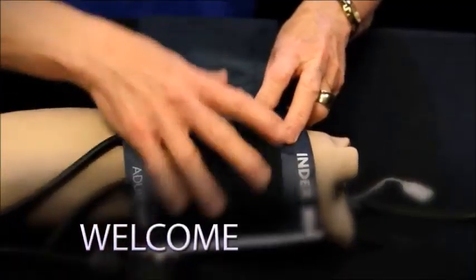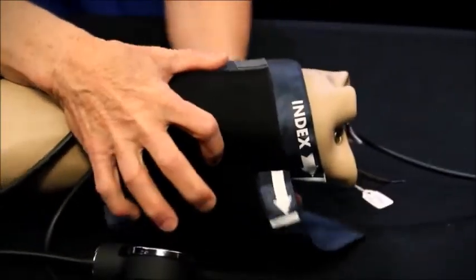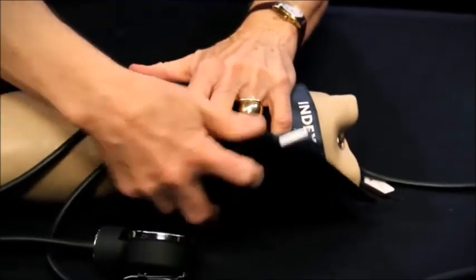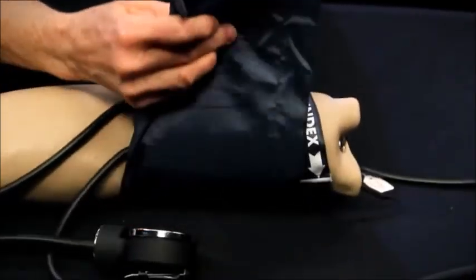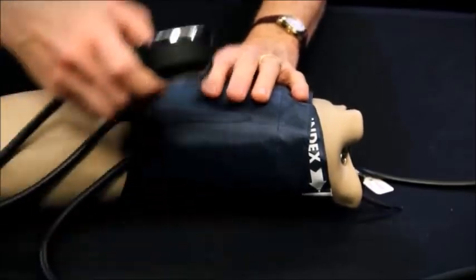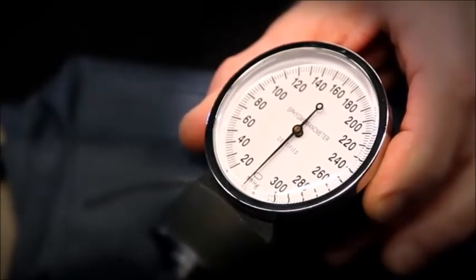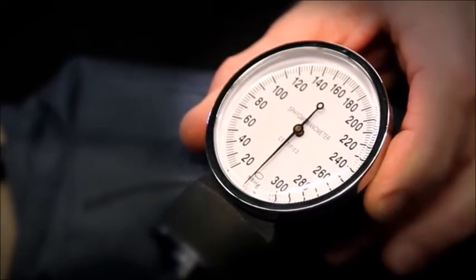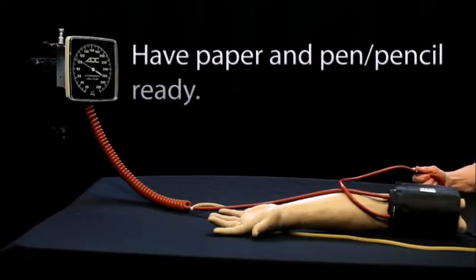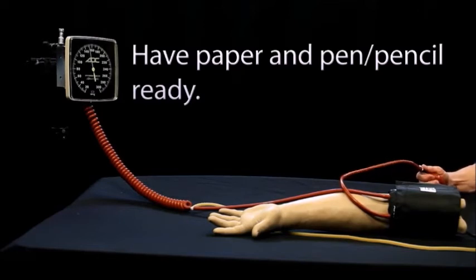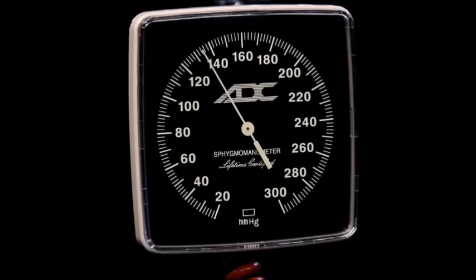This introduction to the skill of reading blood pressure. There are many parts to the skill of taking a blood pressure. This video is focused on learning to read the gauge. You will listen to several blood pressure readings and you will then record your reading, so you will need some paper and a pen or pencil. The instrument used is called a sphygmomanometer. You will be able to say this word.